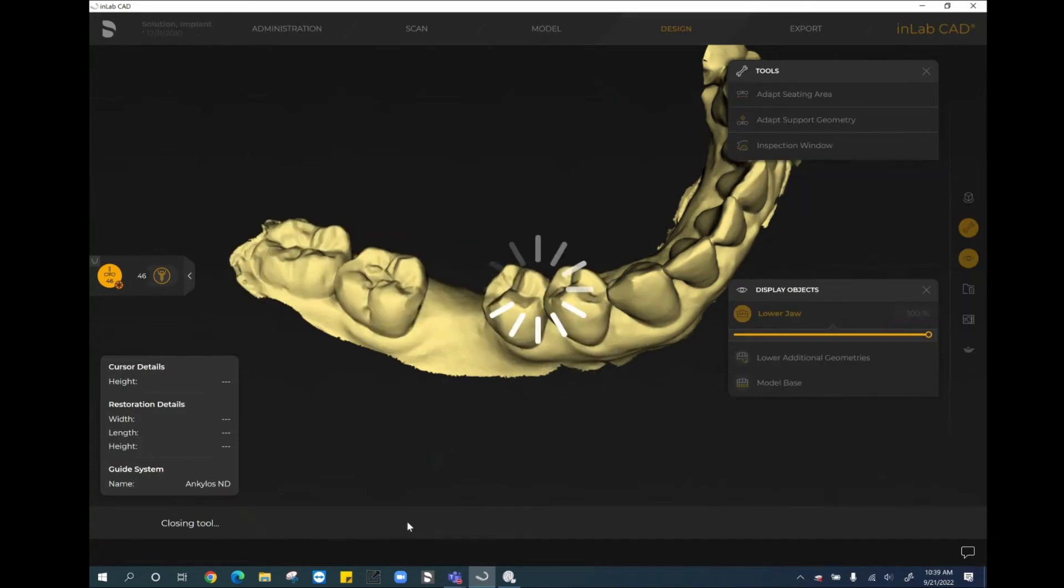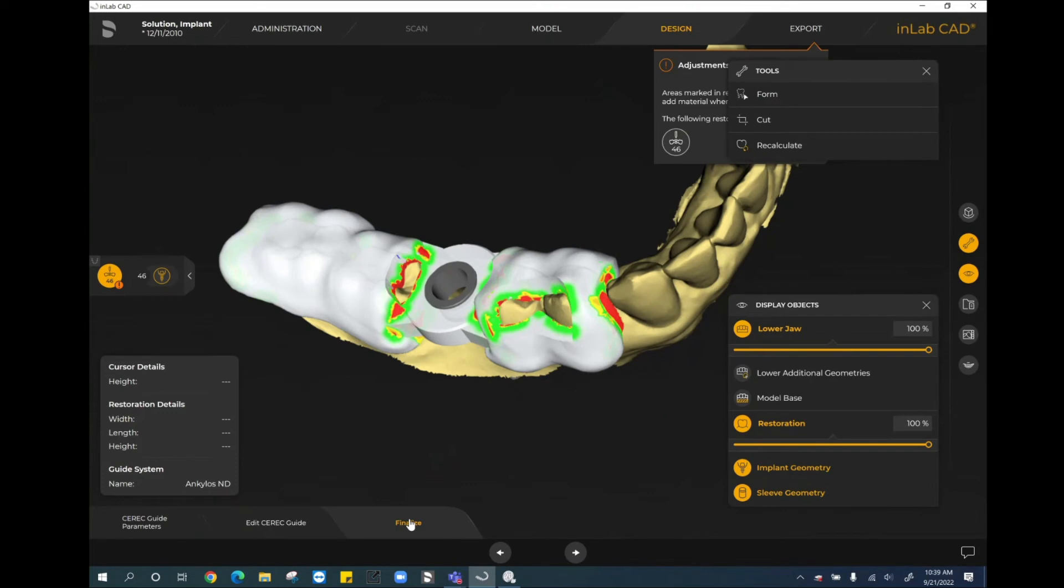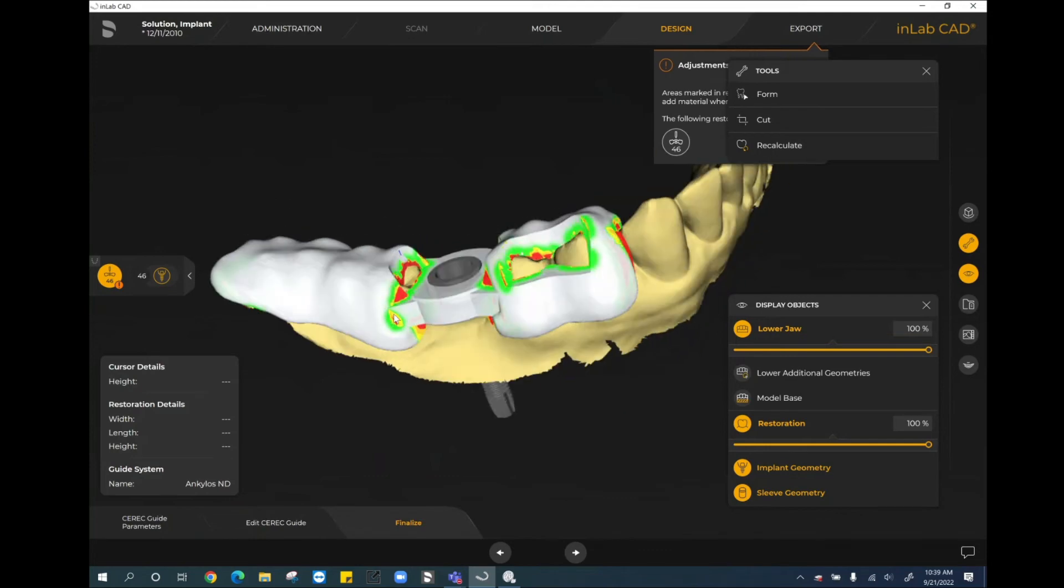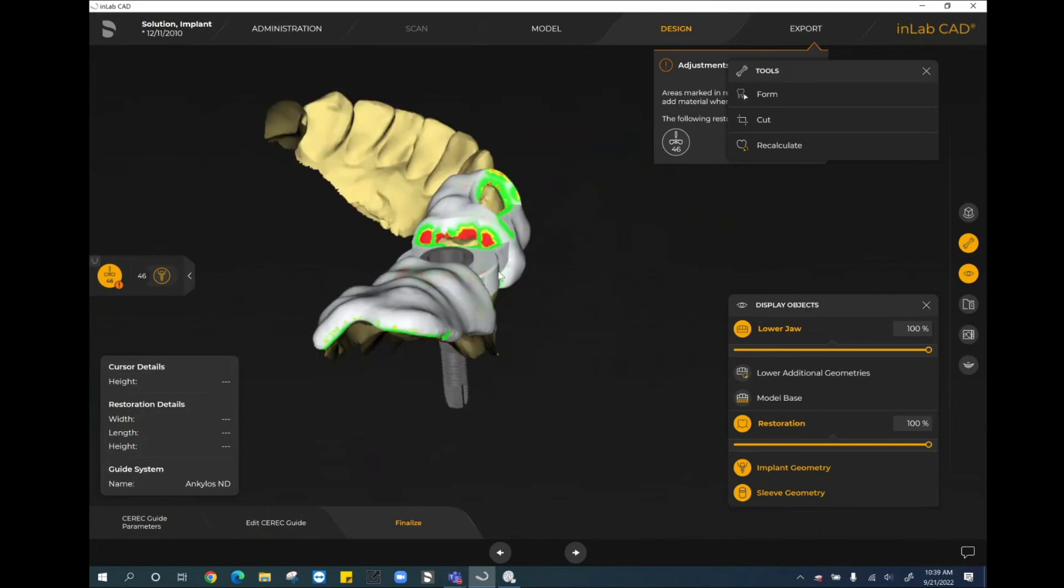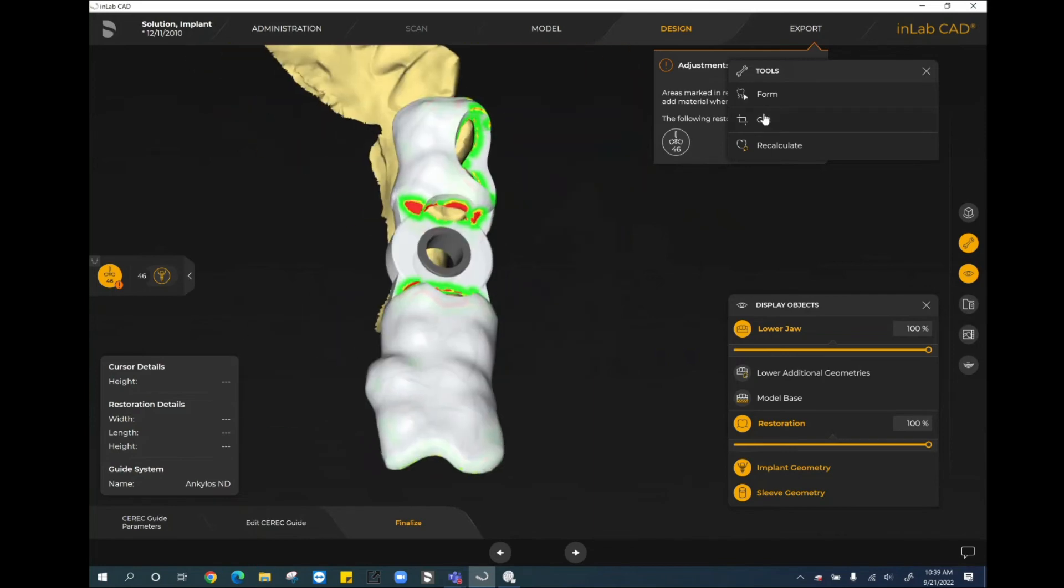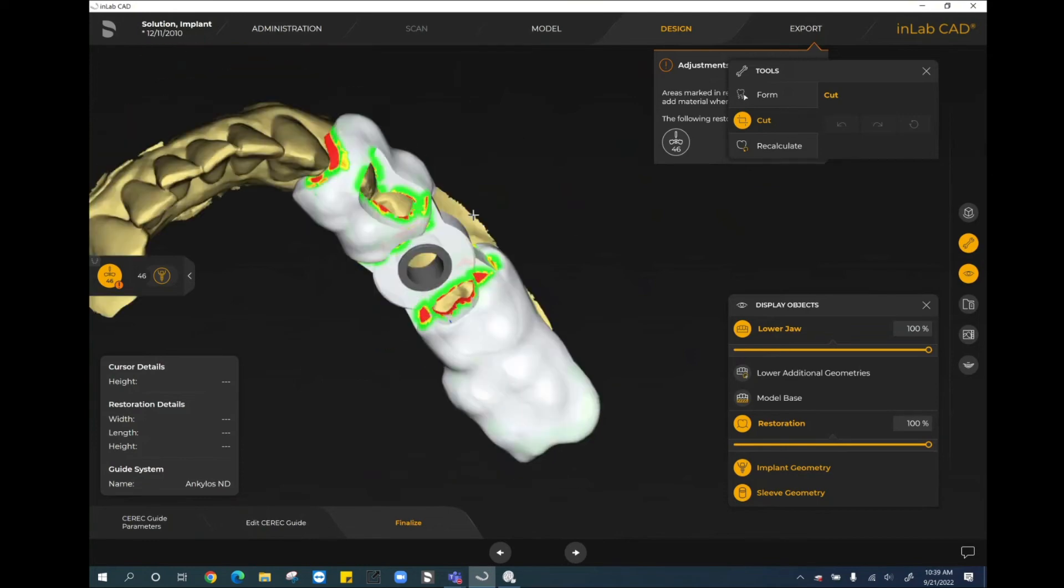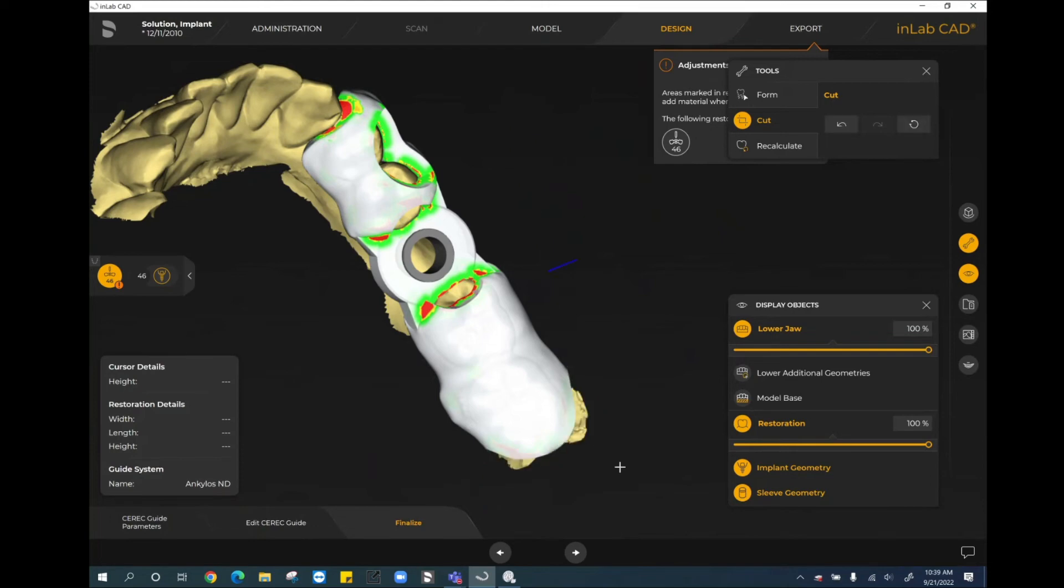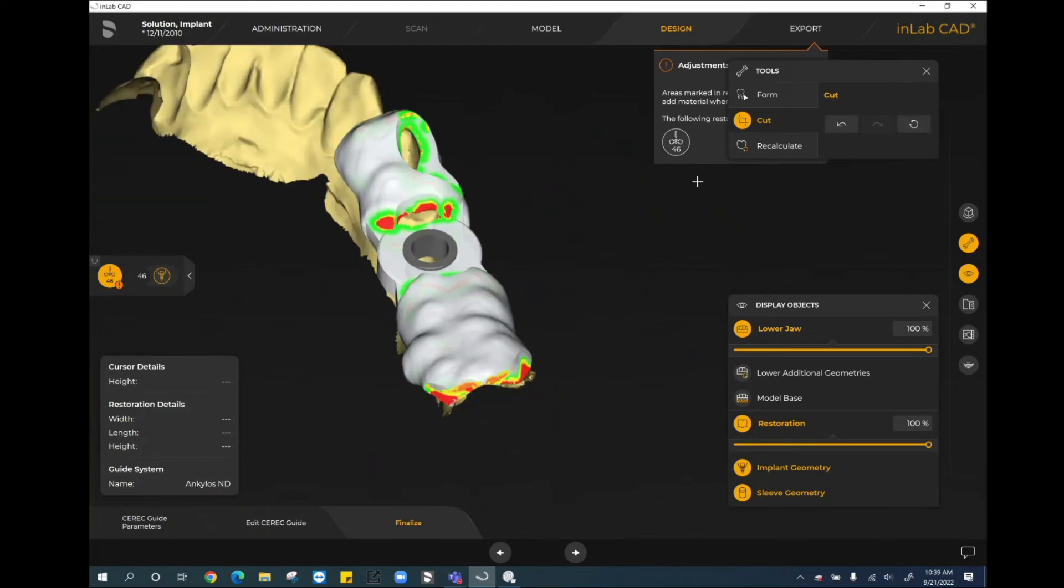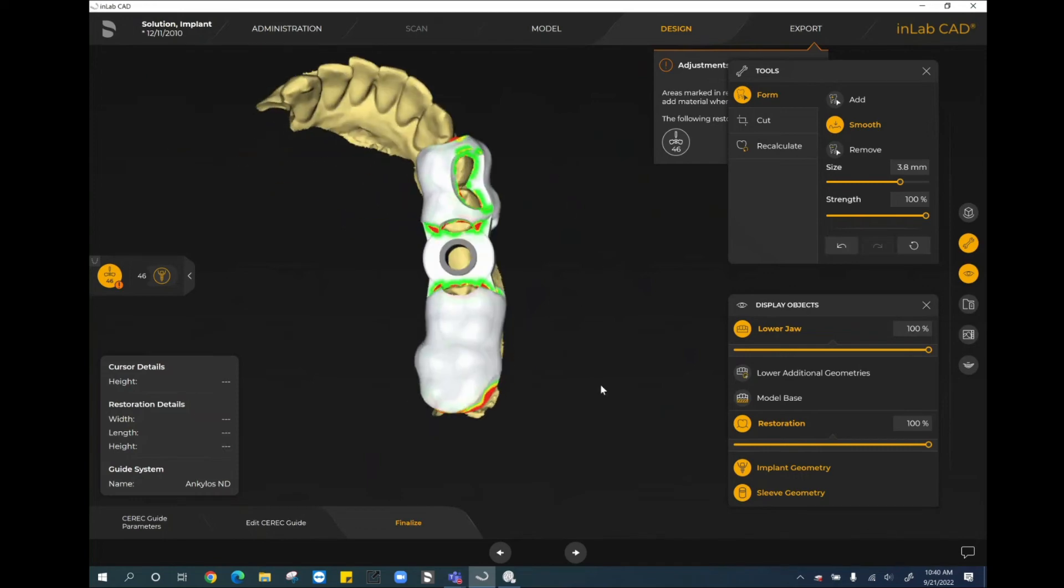In the finalized step, some key things that you can do - if you wanted to use the smooth tool to smooth anything out, you absolutely can. If you needed to use something like the cut tool to trim any portion of the guide away, you absolutely can do that as well. You're going to see here, it's suggesting right now that we have some thin areas. You're always going to have some thin areas towards where the inspection windows are, towards the edges, that sort of thing, that's usually pretty normal. I wouldn't say that you have to change anything here. But I do want to show you if you do want to cut a portion out. Let's say I wanted to cut a little bit out from here on the distal of the seven. I can trim that portion away. And then if I feel I need to smooth anything, I can use the form tool and smooth this edge. You have the ability to do anything you want here in terms of finalizing it with the smooth and the cut tool.